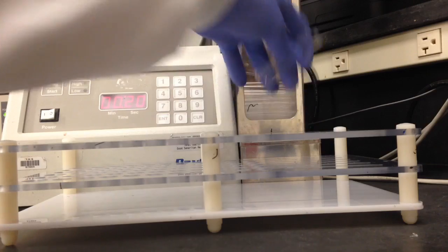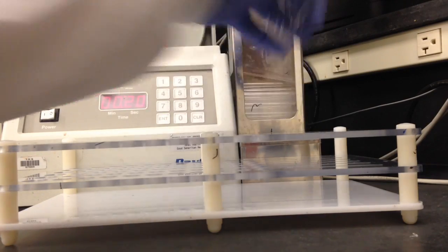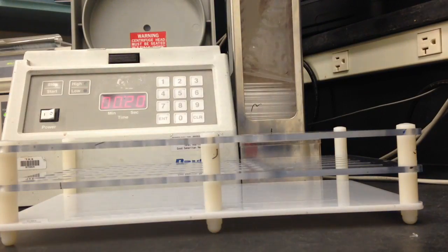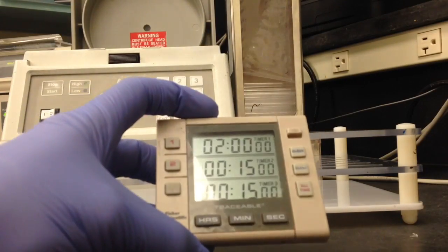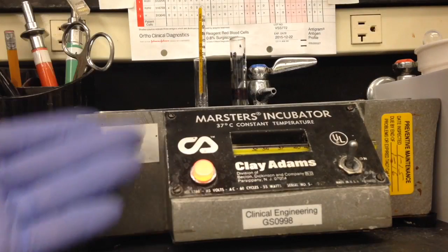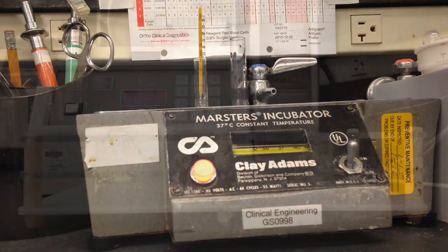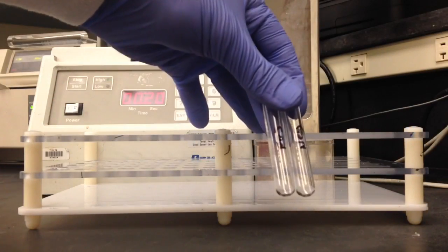You're also going to need a couple tubes. Normally you would be doing a patient specimen with this but like I said I don't have one. You're also gonna need a timer, an incubator set at 37 degrees Celsius, and you're gonna need a cell washer.